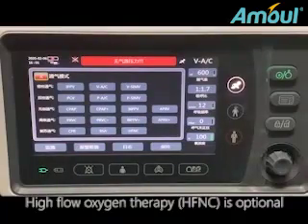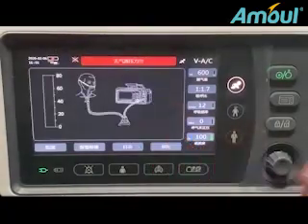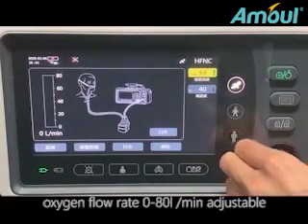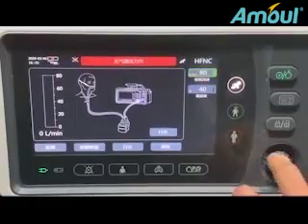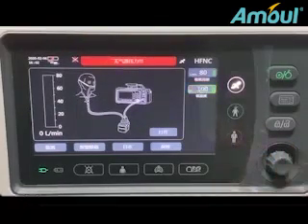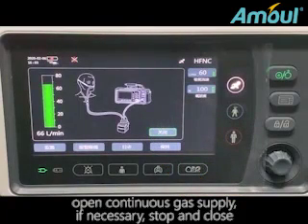High flow oxygen therapy, HFNC, is optional. Oxygen flow rate, 0 to 80 liters per minute, adjustable. Oxygen concentration, 40% to 100%, adjustable. Open for continuous gas supply. If necessary, stop and close.